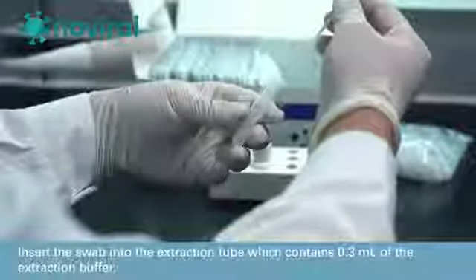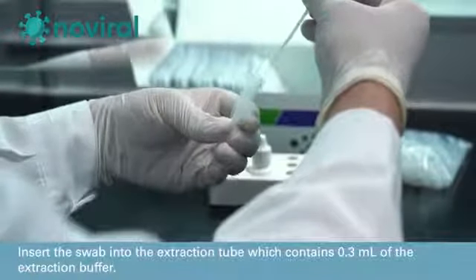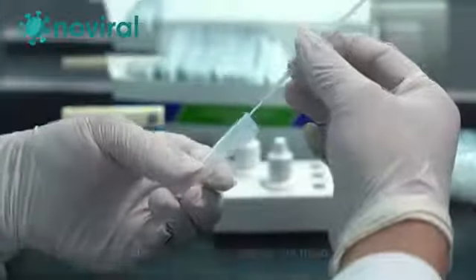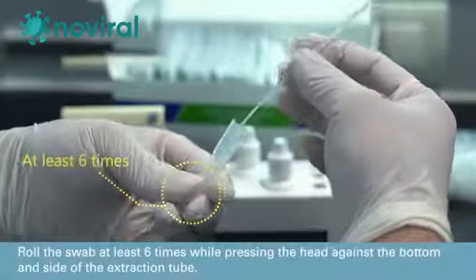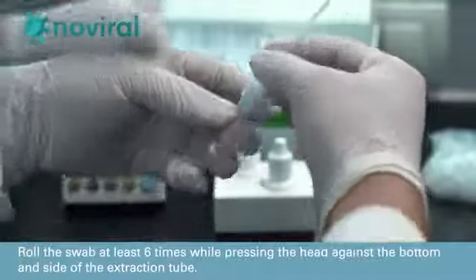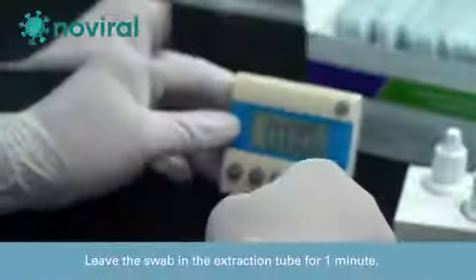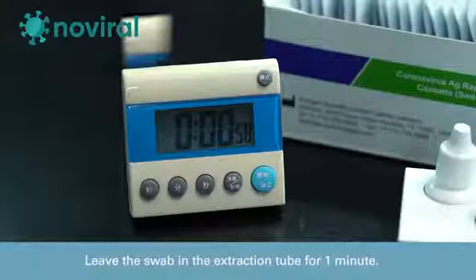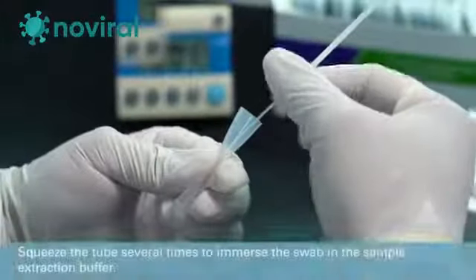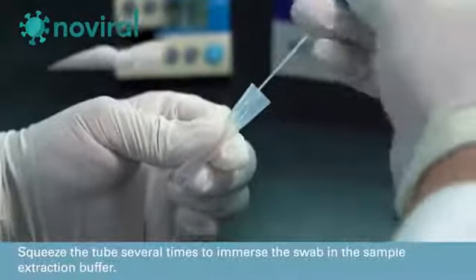Insert the swab into the extraction tube, which contains 0.3 milliliters of the extraction buffer. Roll the swab at least 6 times while pressing the head against the bottom and side of the extraction tube. Leave the swab in the extraction tube for 1 minute. Squeeze the tube several times to immerse the swab in the sample extraction buffer.